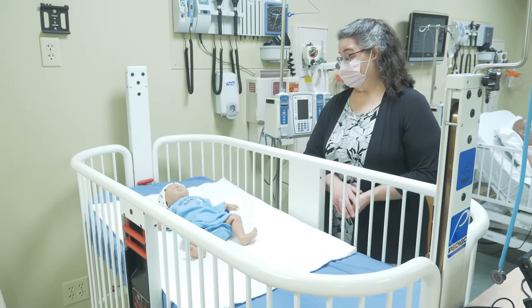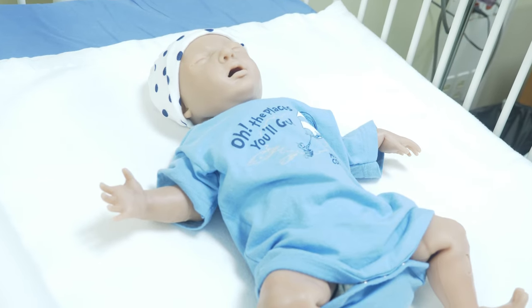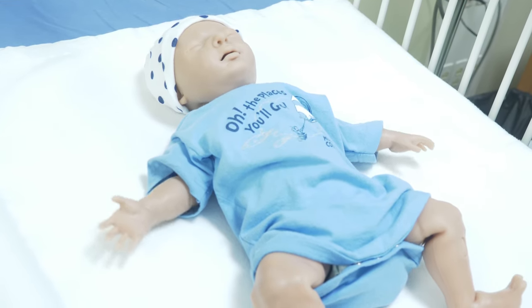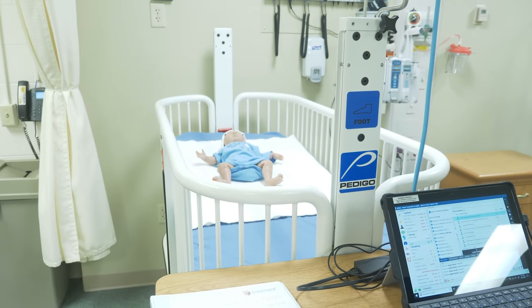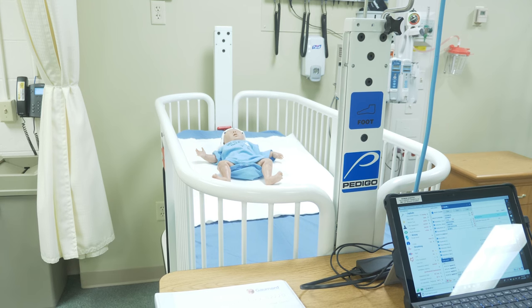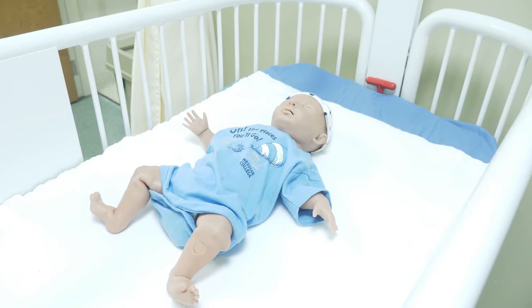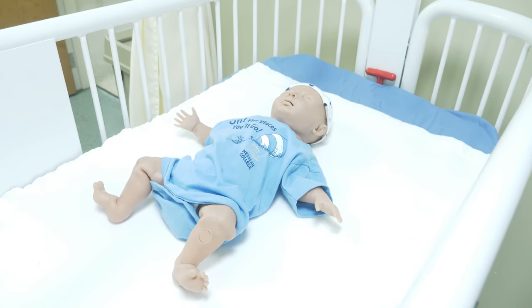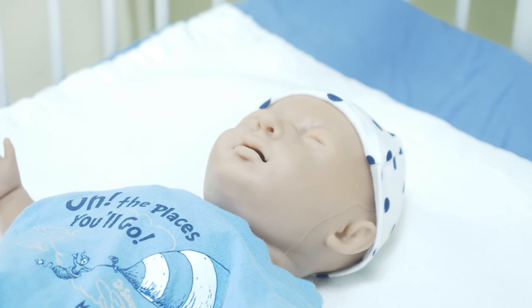This is baby Tori. From a distance, this baby looks pretty real when turned on — you can see how she moves her arms, legs, and face, and she also cries. We use her in many courses. In the maternity course, she's a normal newborn and students practice listening to her heart and lungs and performing an assessment. In the pediatric course, she's a baby who's ill and students can practice various infant care skills. For the critical care course, we can attach her to a ventilator and have students monitor her heart rhythms.